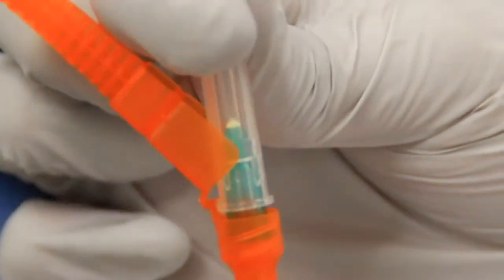If your needle has a luer lock, you can only change the position of the bevel relative to the safety device by twisting it clockwise. It may be necessary to rotate the needle counterclockwise until it slips free of the threads and reseats itself, before tightening it again to ensure the safety device is out of the way with the bevel up.